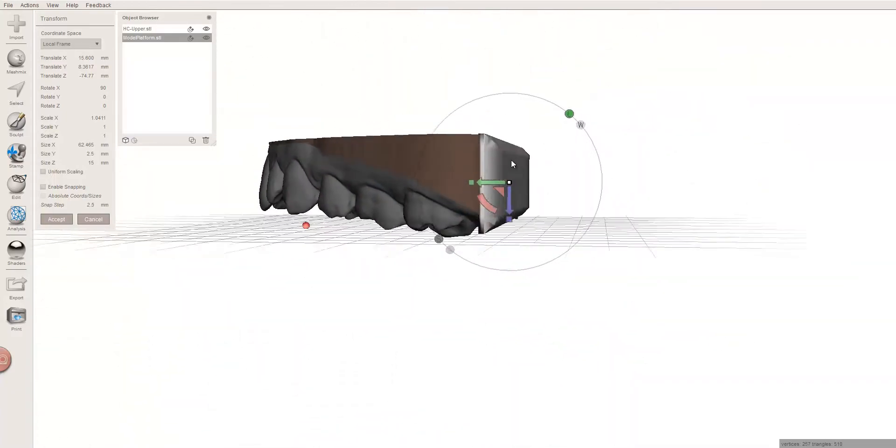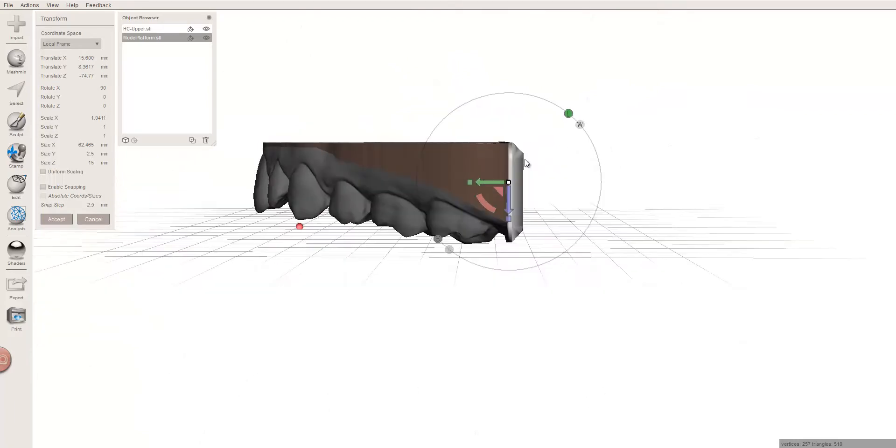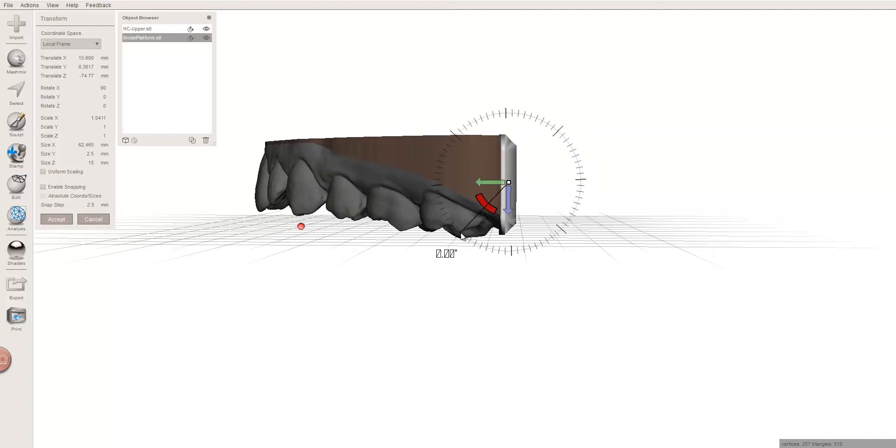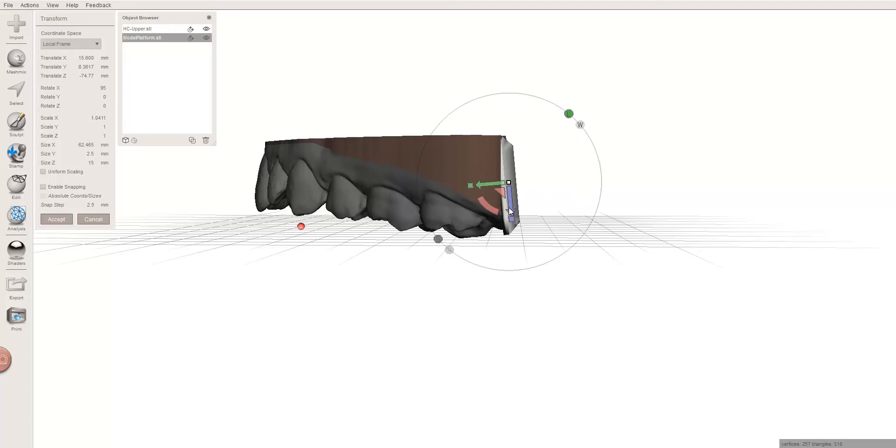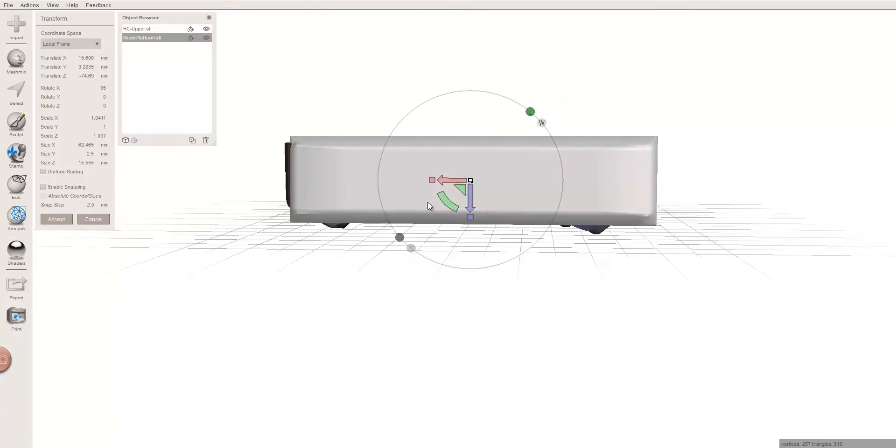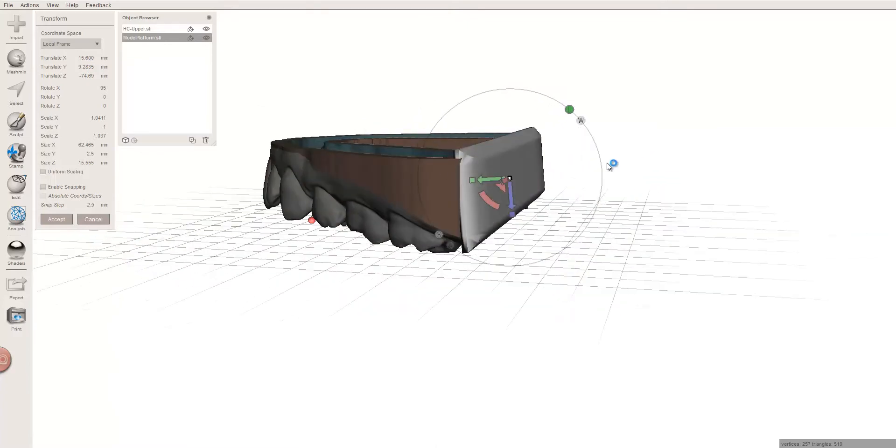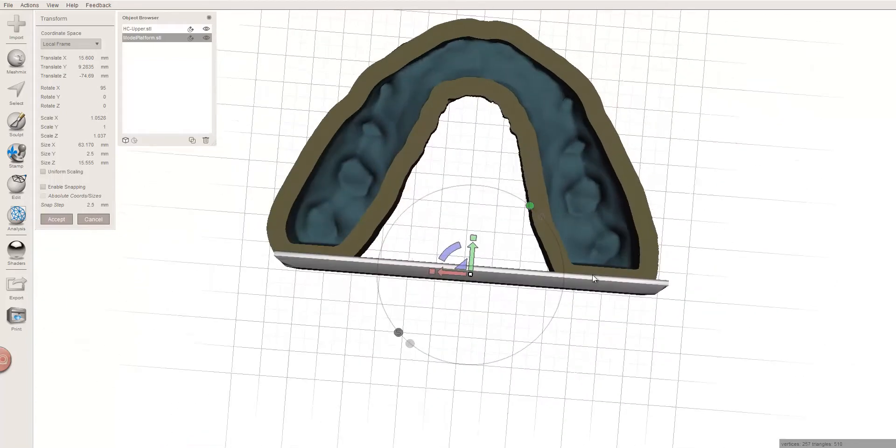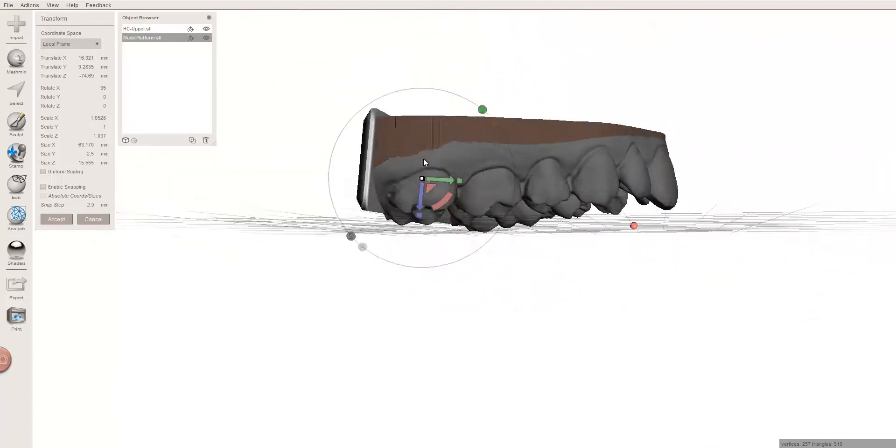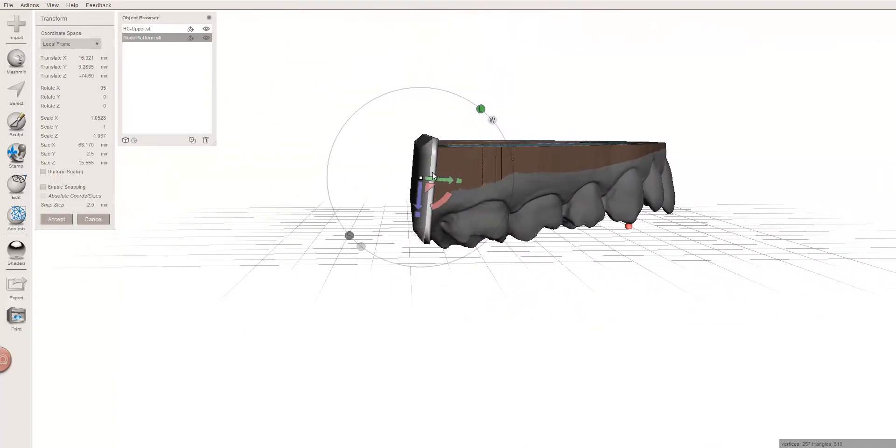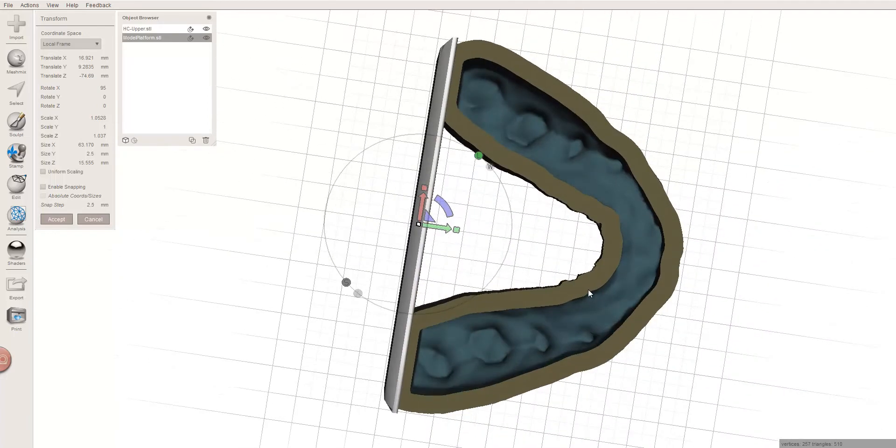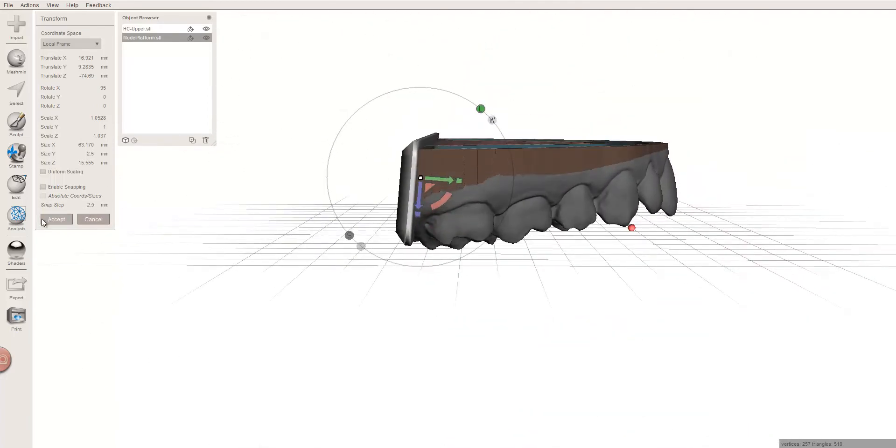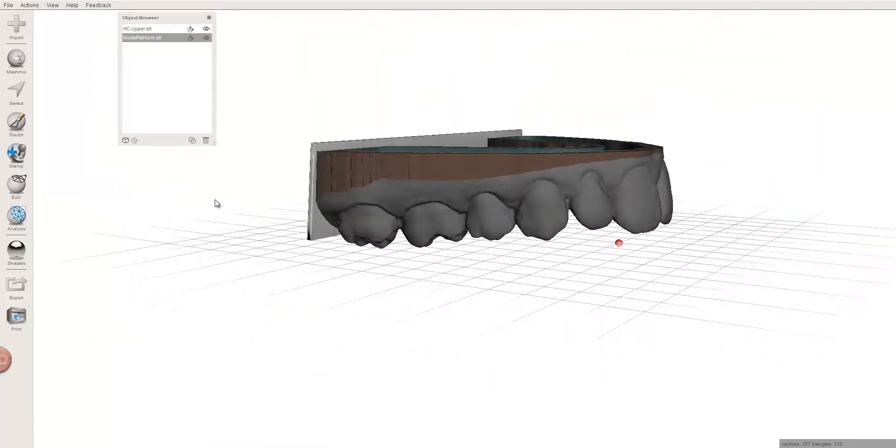Now, what about the angle? What if we want to do an angle print? Well, instead of doing the distal plane cut, which is problematic, you might just skip that, and do your 5 degree angle here, extend this a little bit, make sure there's nothing that sticks off. It's not as big as the allowance of 90 degrees, but when you do have an angle, you might want to make sure, because some things might not succeed in the print. But we're fairly well covered, there's nothing sticking out of the model, and now when I print, I'm going to attach to here. I didn't have to do any sort of distal plane cutting, and yet I've still accomplished my 5 degree angle for my print.